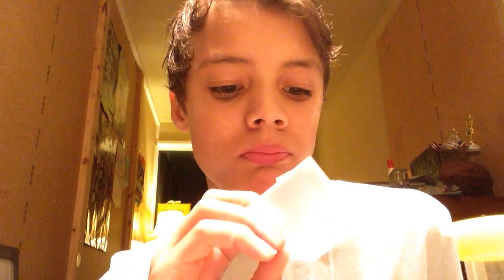They give me a mirror so I can see if anything's wrong. And I've also got wax. If there's like a wire loose on the back — when it tightens, the wire screws back. You ball it up and put it in the back, or wherever it's bothering you, and that'll be enough until you get to an actual appointment where they'll fix the problem.